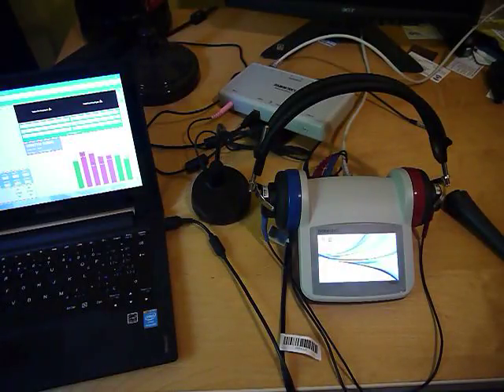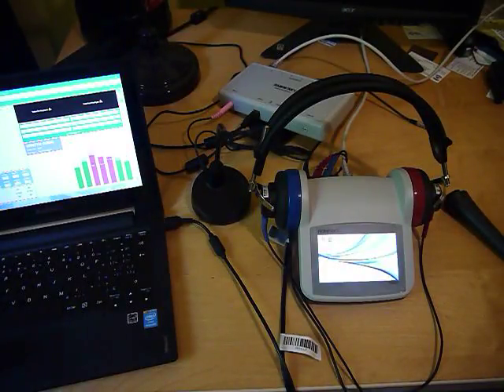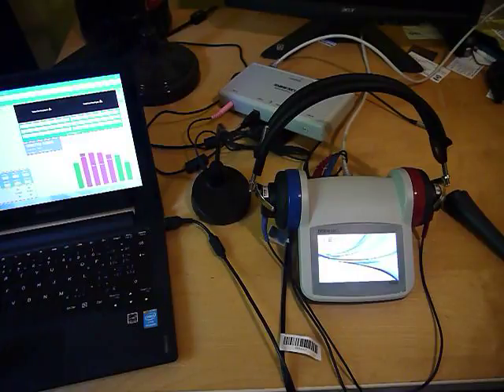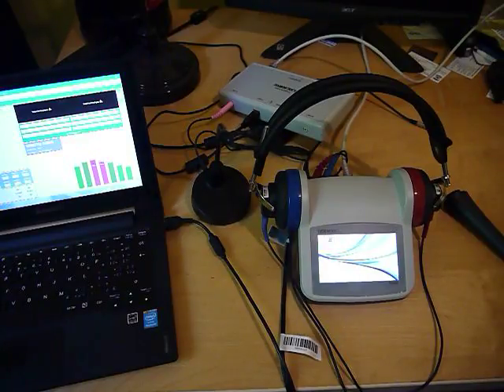This video is on the Tremetrix RA-660 audiometer. First we'll go through the different components.